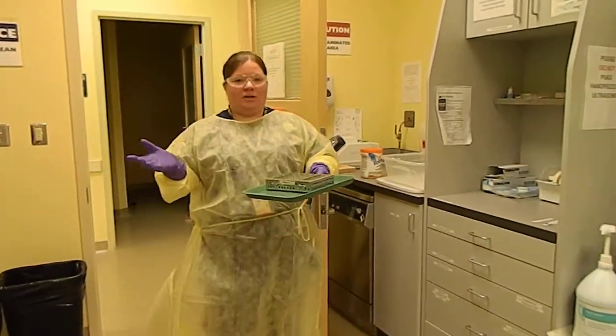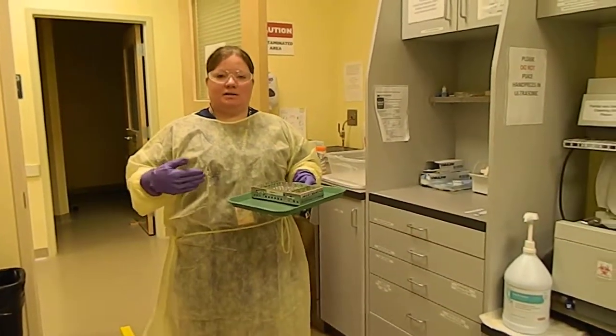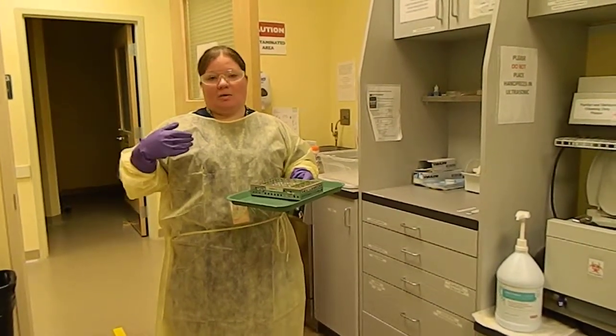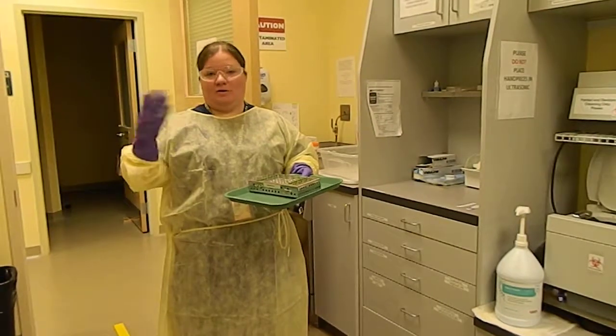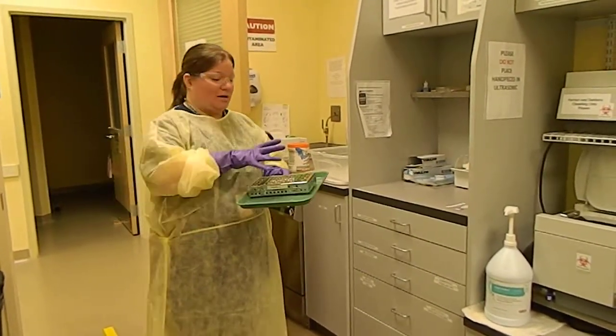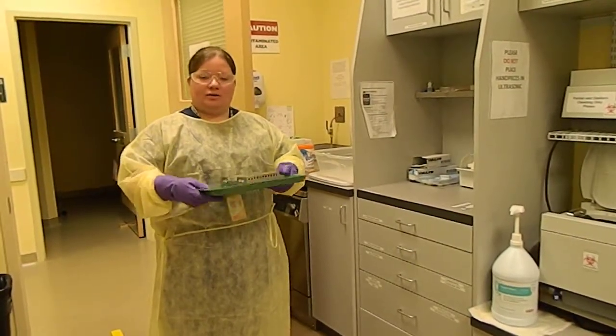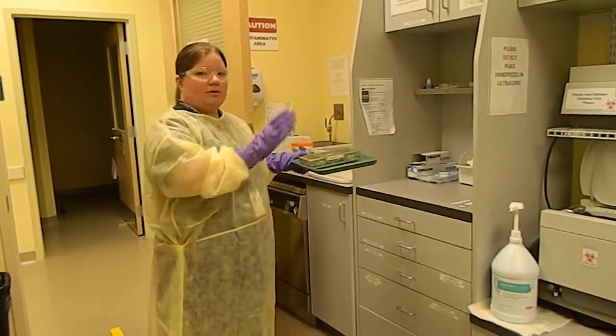Okay, so I've just finished patient care and when I'm coming into the sterilization room I want to be in full PPE. You'll notice I'm not wearing a mask but you won't be able to hear me if I wear a mask, but you're supposed to wear a mask. So we bring all of our instruments back on a tray and carry it to the dirty side.